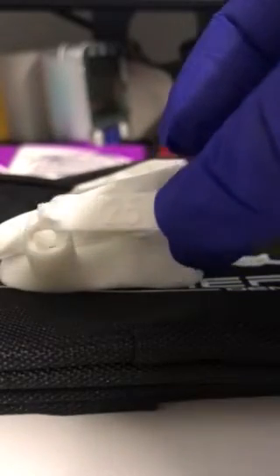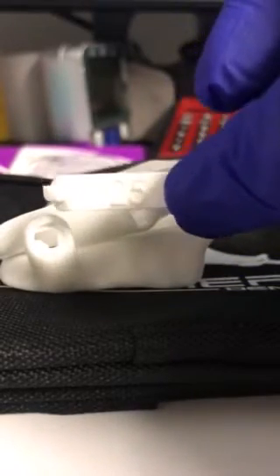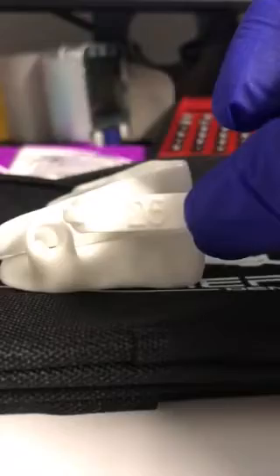So we had strap 25 on and if you're moving down the numbers then you're gonna put 24 on. It comes in a little pack and you take those out — take the straps out — and that's the one that you're gonna put on, and you have to do this on each side.